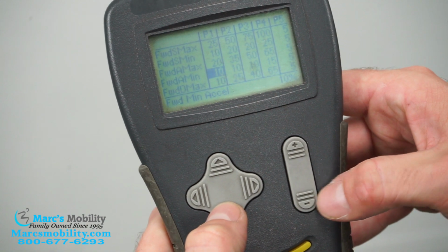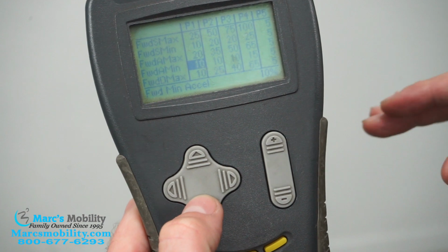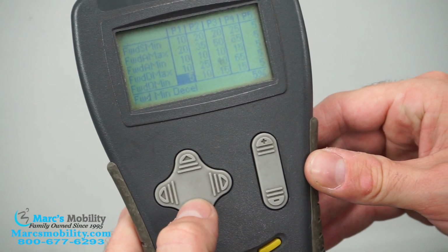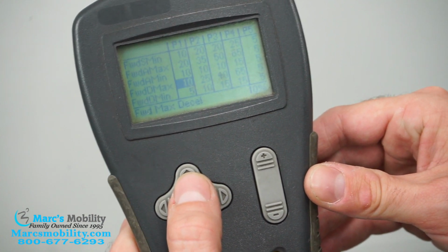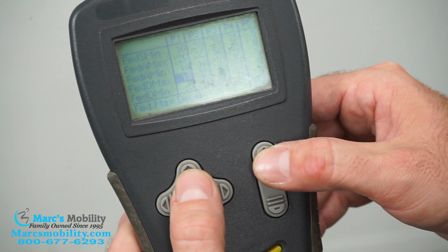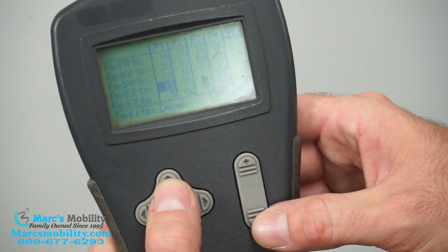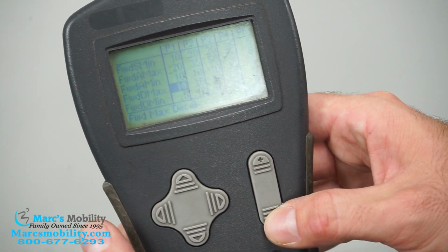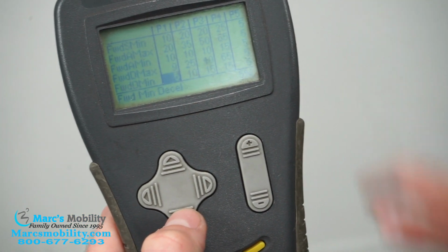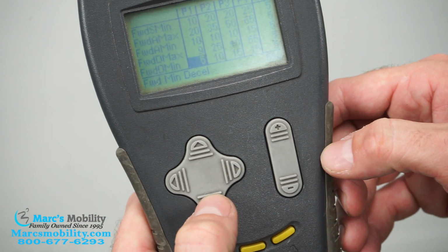And for everything, you're going to have a maximum amount and a minimum amount. So you set the most you ever want it to do and the minimum you want it to do. If you keep going, you also have a forward D minimum max. That's going to be your deceleration, so how fast you're stopping. So if you wanted to stop faster, you're going to go up. And if you wanted to stop slower, which is, it's going to drag a little bit, if you're feeling it's too jerky when it's stopping, you'll go down. And once it's on the number you want, you can just move along. It's set. It's already saved. So next, there's, again, a minimum for deceleration as well.